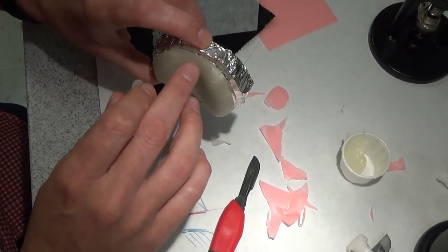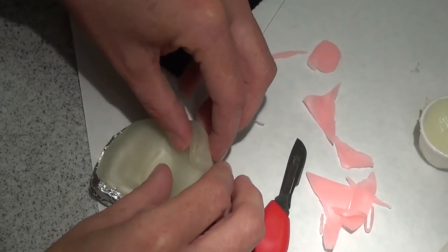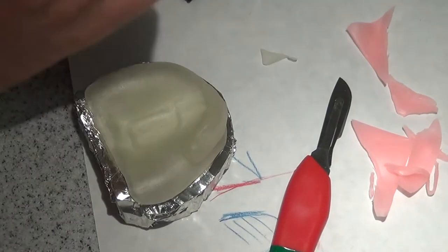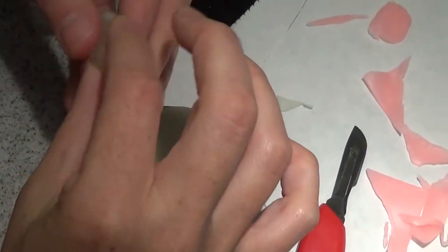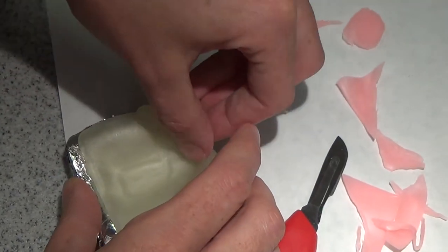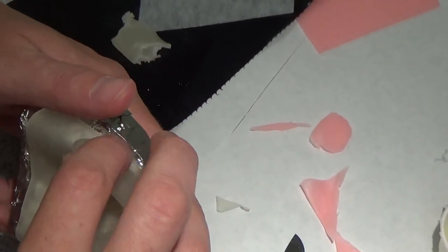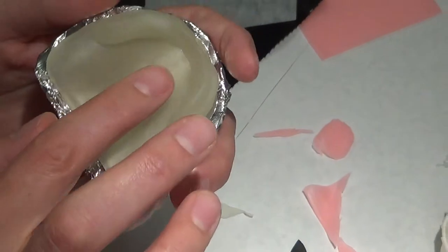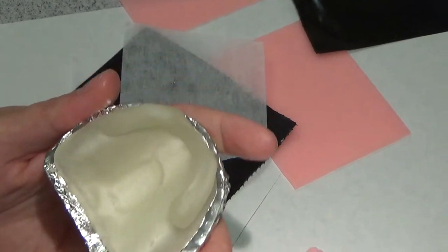And I'm going to extend it down a little bit in that front area because I want some support. You see where that's going to get thin? It's got, it's just a thinner area. It doesn't have a lot of support. So I'm going to bring my handle something like this and do a little bit more. I want to make sure that this handle doesn't interfere with my border molding movements. So I'm just adding this for stability and thickness. And then I'm going to come back and shape this to the size that I want it.